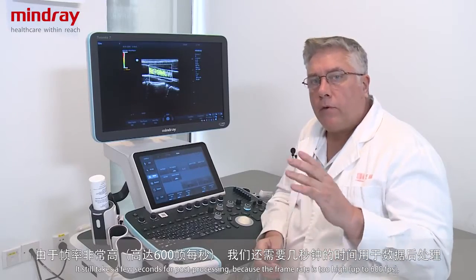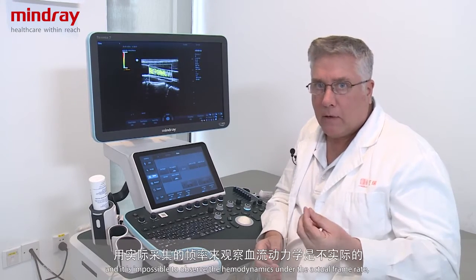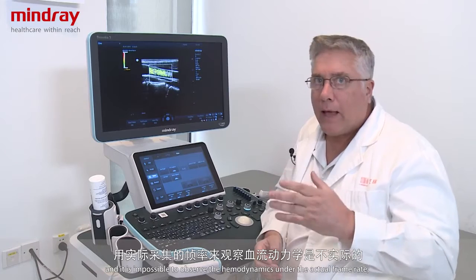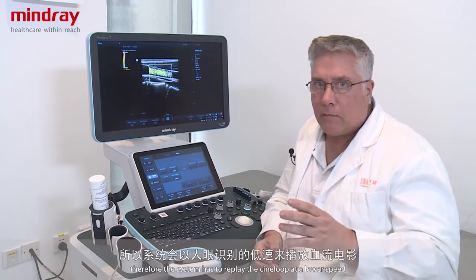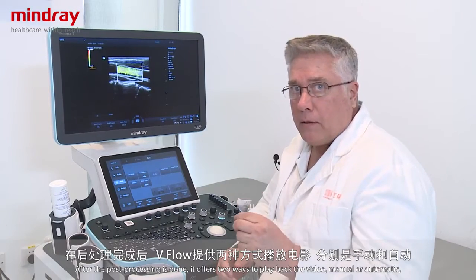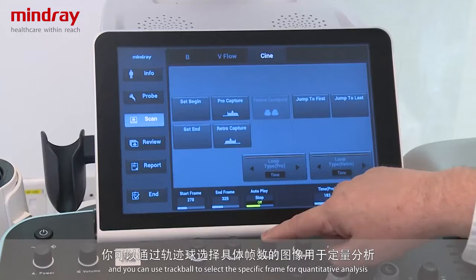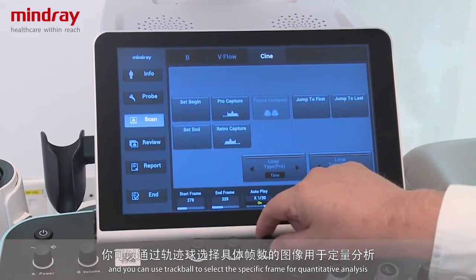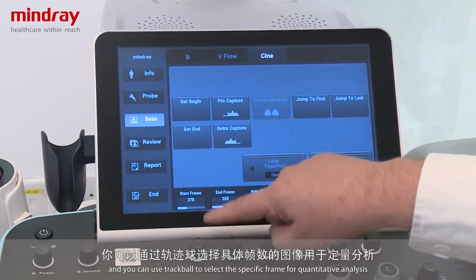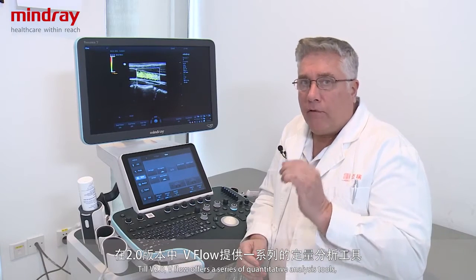It still takes a few seconds for post-processing because the frame rate is so high — up to 600 frames per second — and it's impossible for the human eye to observe all hemodynamic information at that rate. So the system replays the cine loop at a lower speed. Once post-processing is complete, the system offers two playback modes: autoplay at varying speeds, or manual mode, which allows you to select the beginning and end frames as desired.